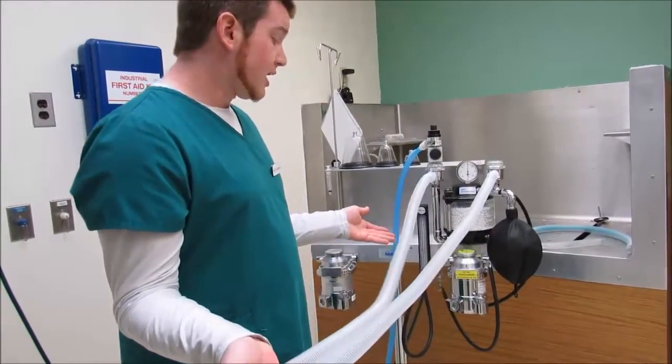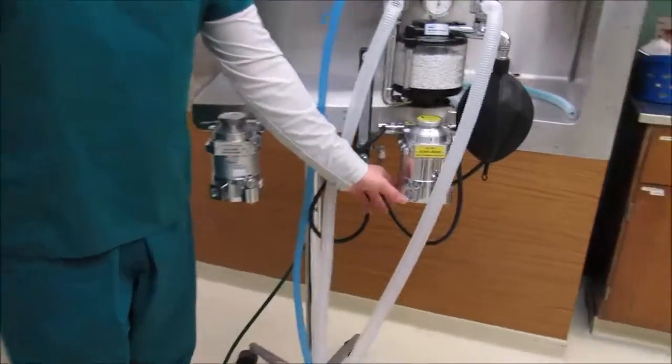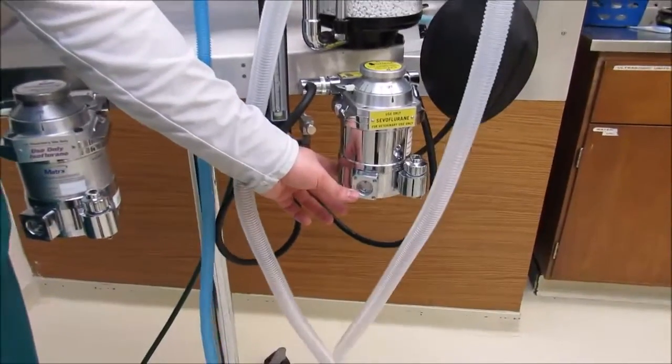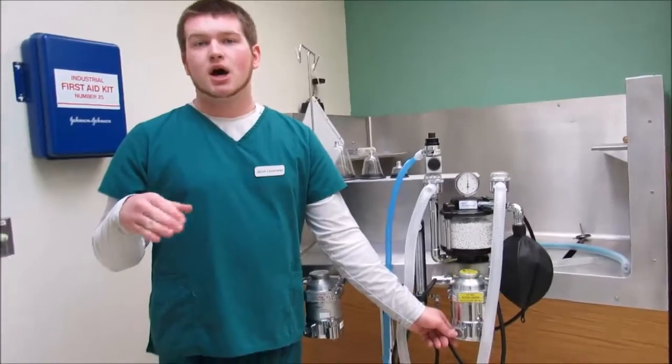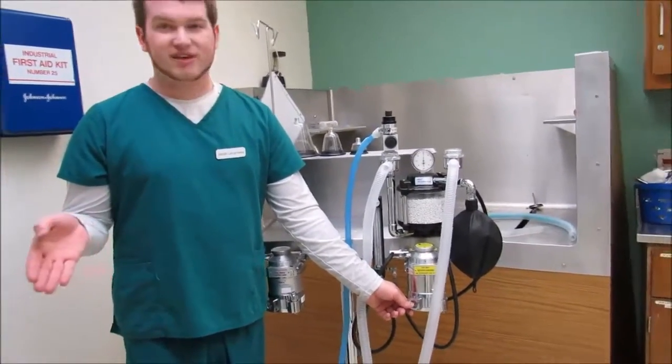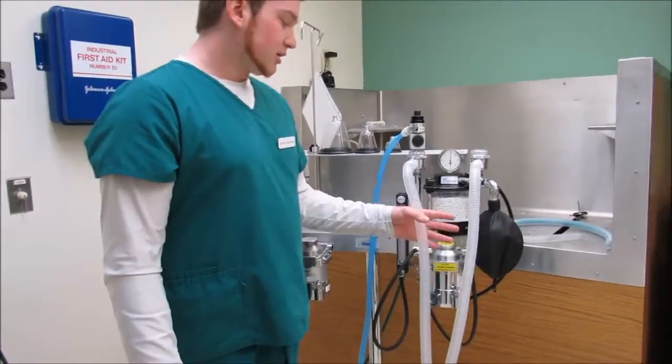Now we're going to check the vaporizer. So if you come here and you look here, there's a line which tells where the meniscus level would be on the machine. You want that to be at least up to that line. If it's low, you should fill it. It's not that difficult, so just fill it. That's the proper thing to do.